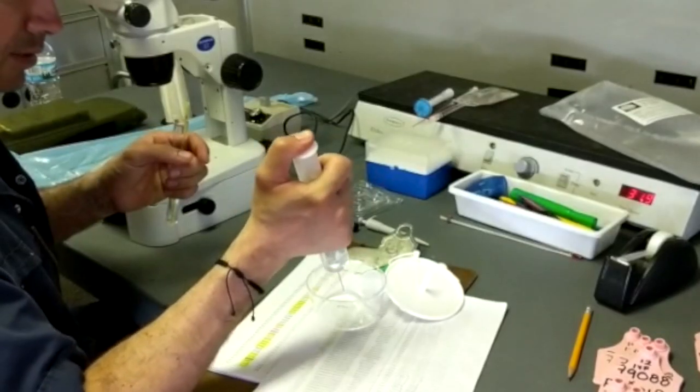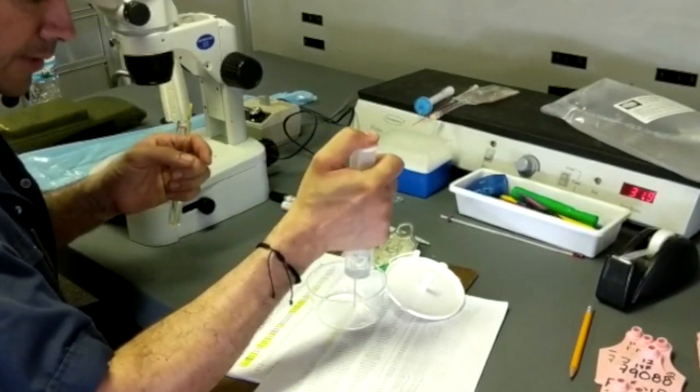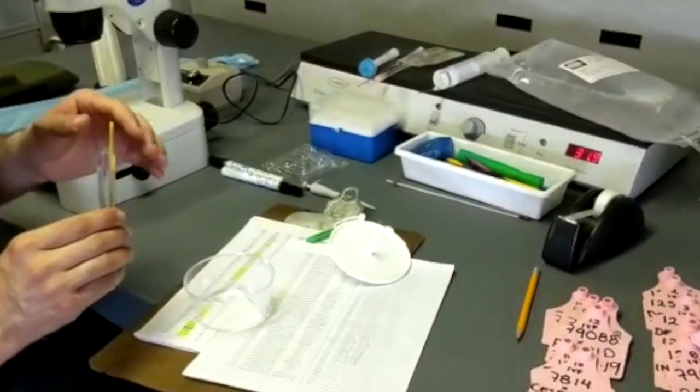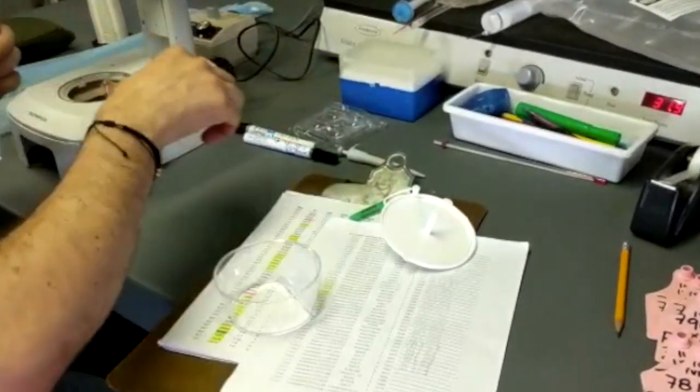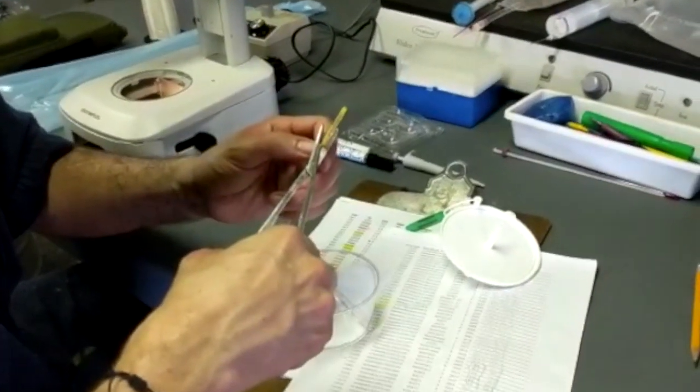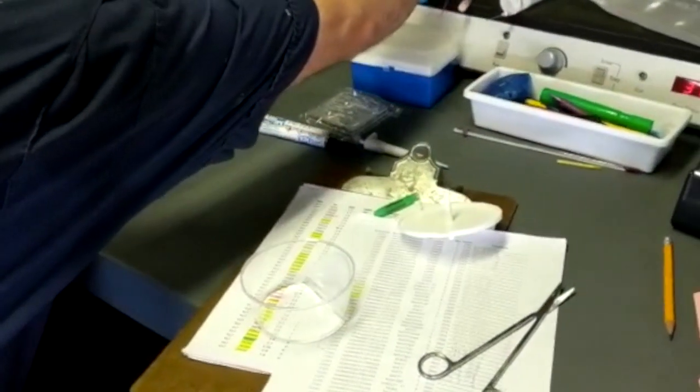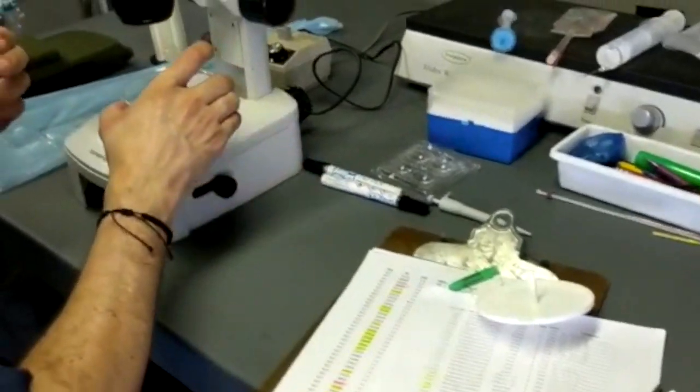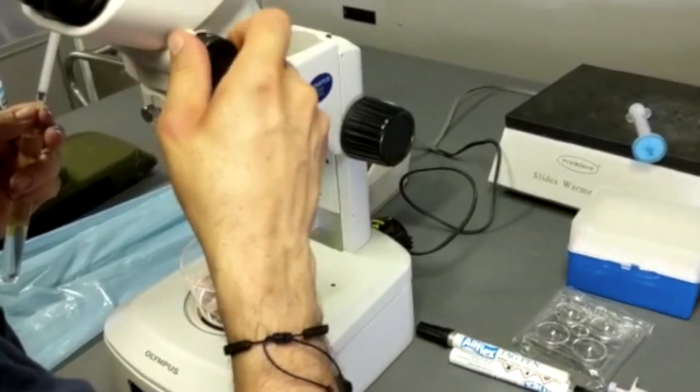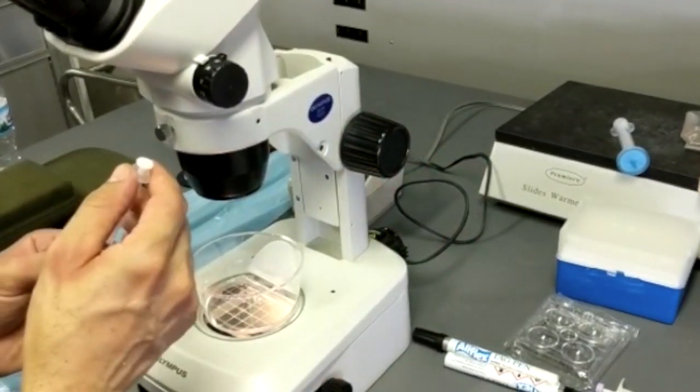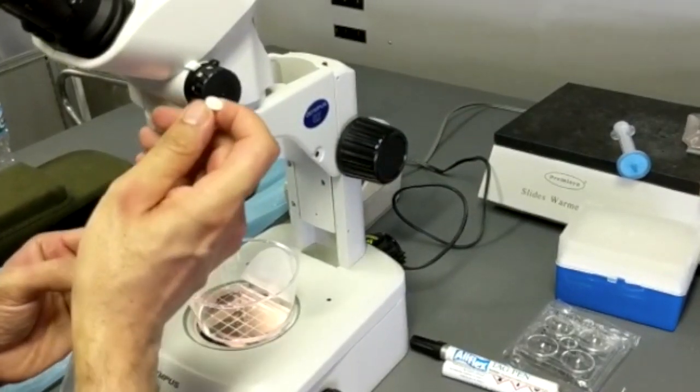Now we're going to take it to the filter and search it. We put a little bit of media in the filter. Then we break them, then we cut the plug.